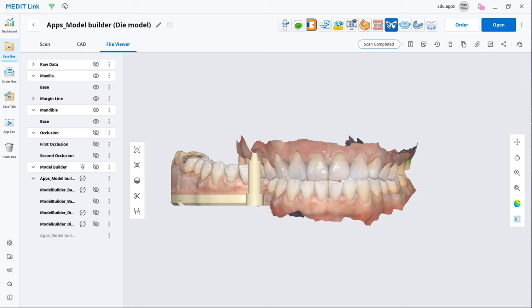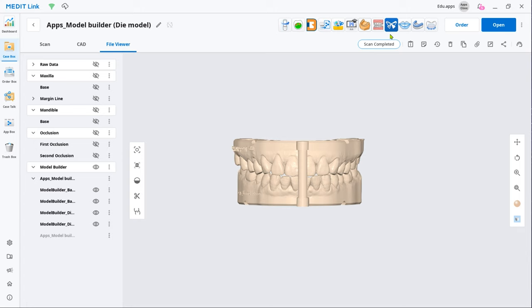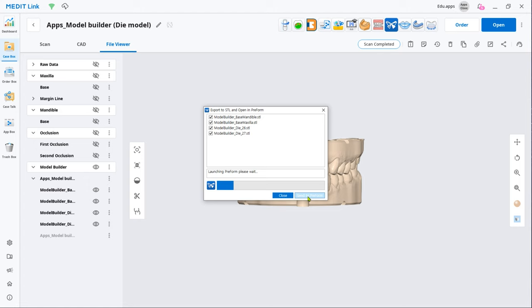Now you have a 3D printable model. If your 3D printer manufacturer has integration with Medit, you can find their app in our app box. Install it to export the completed project file directly from MeditLink to the CAM software. Select the file you have just created and export it to prepare the model for 3D printing.